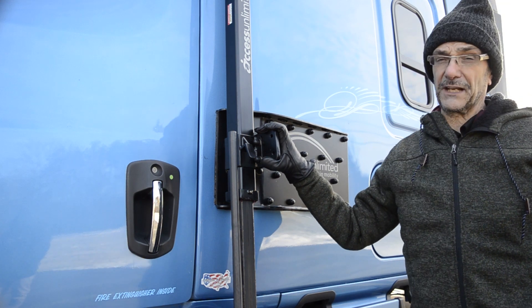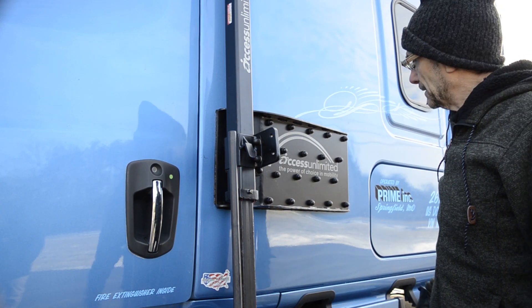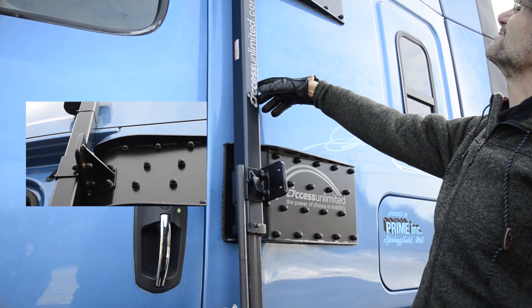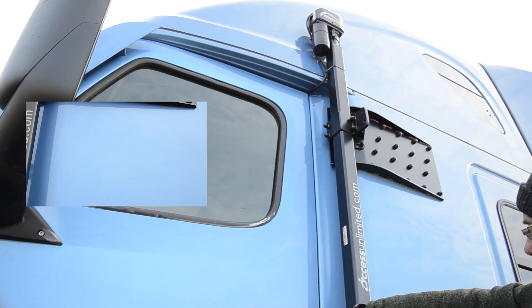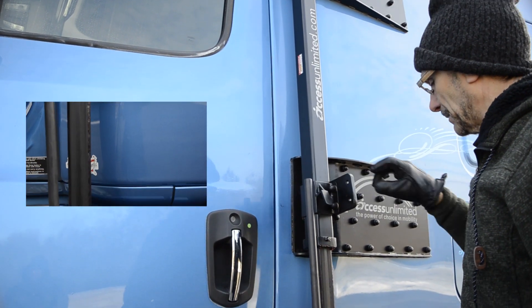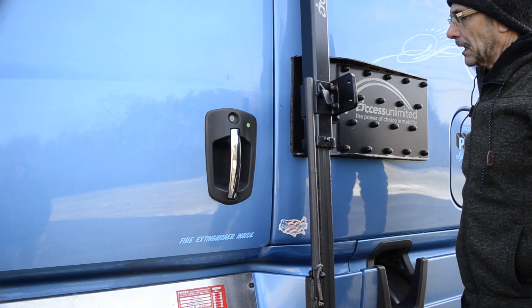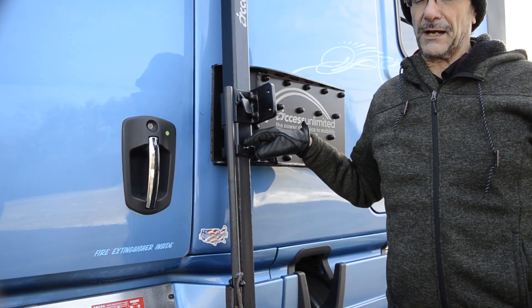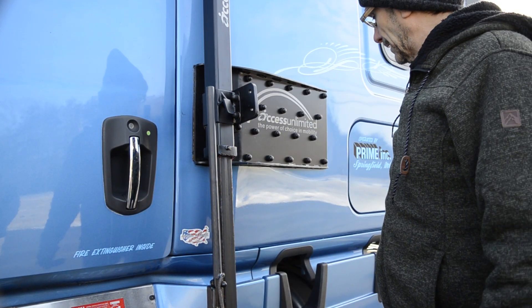It is good to have the flexibility to use it in multiple vehicles, though there's certainly no guarantee. You've got the drive mechanism here — that's your drive motor up on top, with wires going into the interior. There are adjustable collars, and this is the catch that actually latches the platform. The safety arm gives you something solid to hang on to when you're standing on it. The unit uses a screw drive inside. When it's in the driving position, it's all the way stowed up so road debris does not contact the lubricated friction areas.